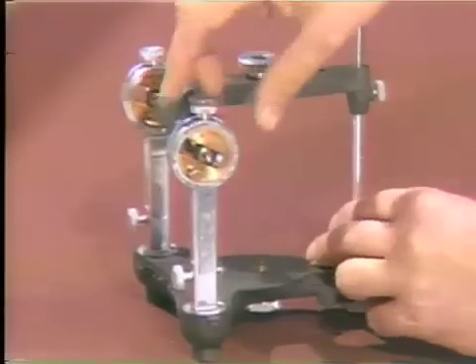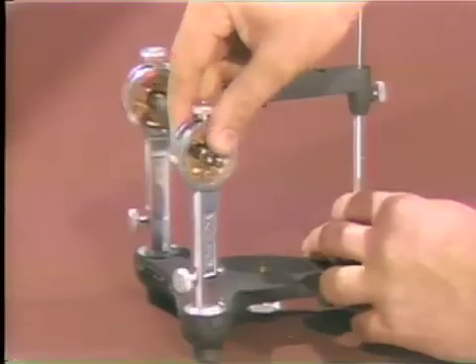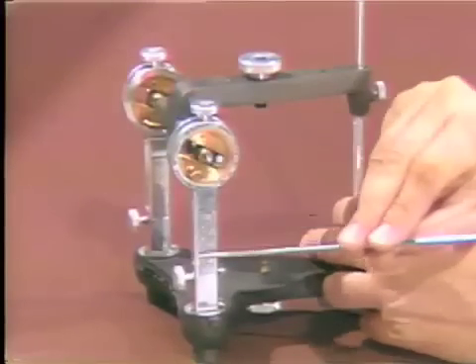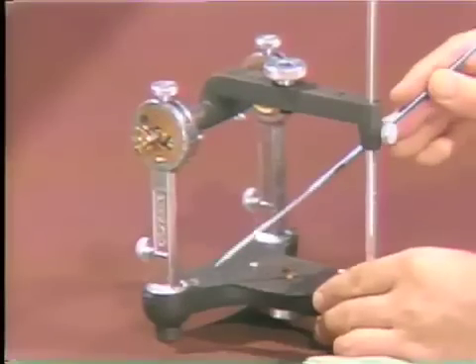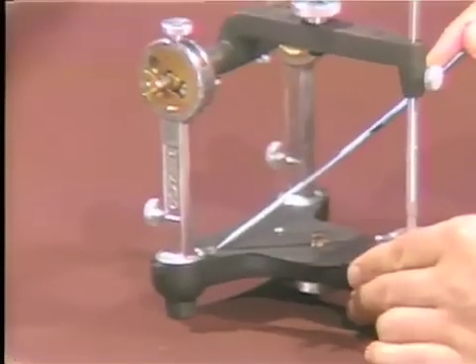This part of the articulator also rotates in this fashion by loosening the bolt in this vicinity, allowing such a movement. Turning the articulator, you can see numbers registered at this part of the instrument that record this axis of rotation. This has been referred to as Bennett's angle.